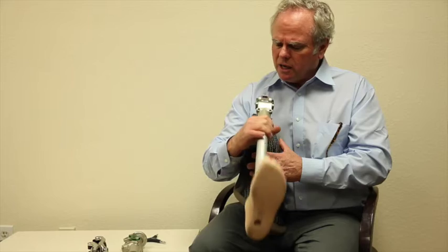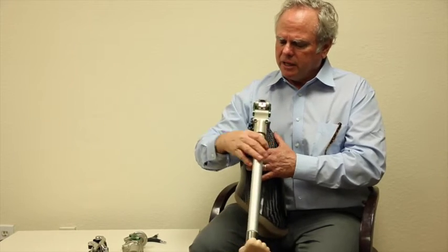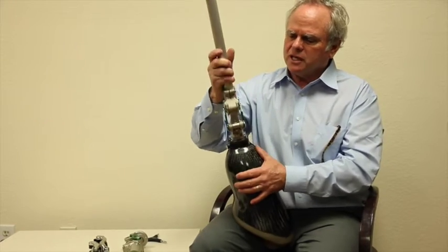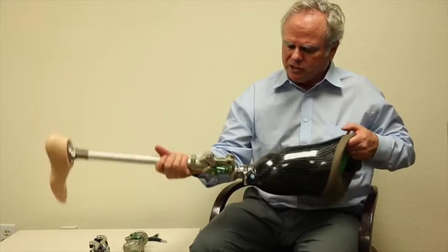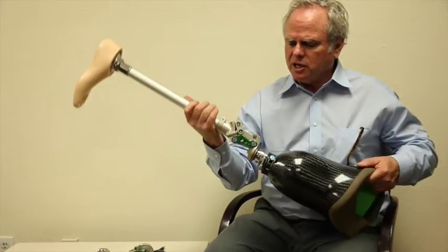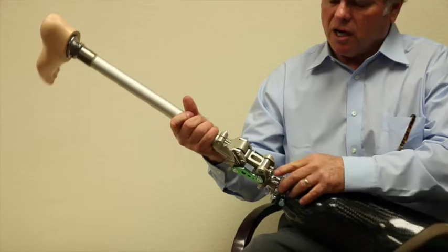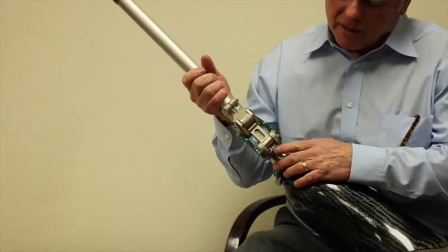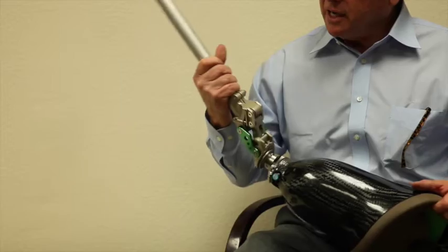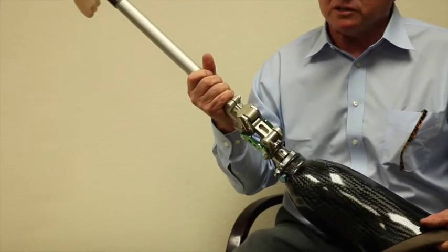The other adjustment on this knee is the ability for the friction. How do I adjust my friction? The friction is adjusted on top right in this little slot right there. And you just tighten that up and that will make more or less resistance.